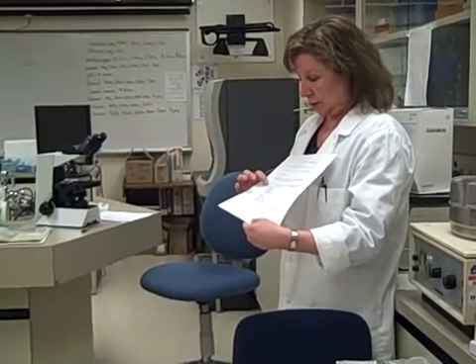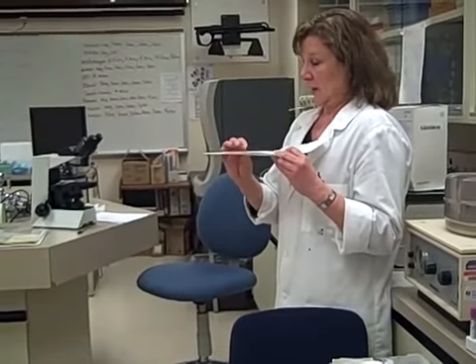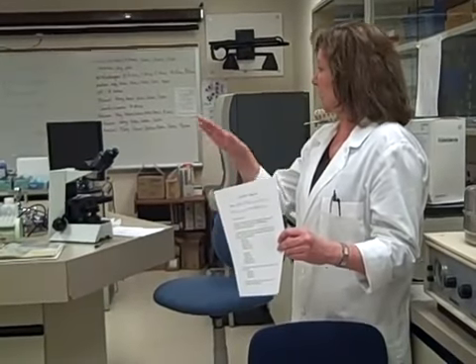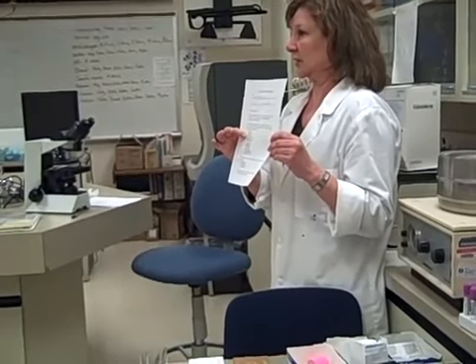On the front, you'll put the specimen number, patient name, specimen type — which is pleural fluid today — and then you're going to do what's called a total nucleated cell count. We're going to count all of the nucleated cells, and then we're going to count all of the red cells. The reason we say nucleated cells instead of white cells is because in many body fluids we'll see cells that aren't white cells, like mesothelial cells — which are the lining cells of the body cavity — or tumor cells. So anything with a nucleus, we count separately and call it the total nucleated cell count.